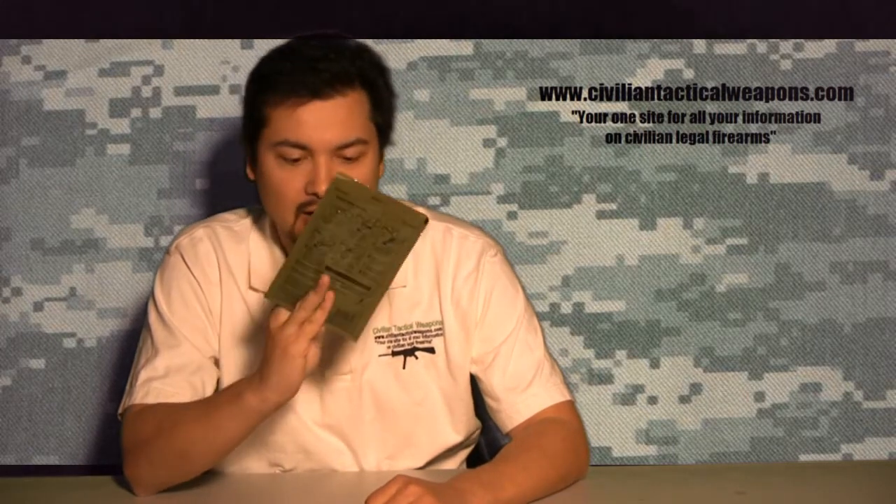This runs pretty much — I think the list price on this stuff is like $29.99. This is called Celox, C-E-L-O-X, by Sam Medical Products. Their website is sammedical.com. And you don't need any — there's no heat generated in use of this, so it's not like you have to worry about it burning the wound like in a Rambo movie or anything. It doesn't generate any heat. It's just designed to clot blood, and clot blood very quickly. So it's great for severe bleeding.